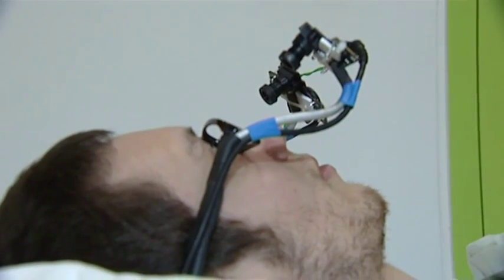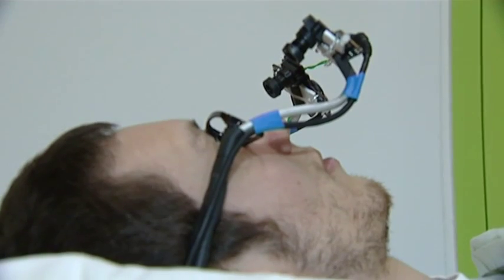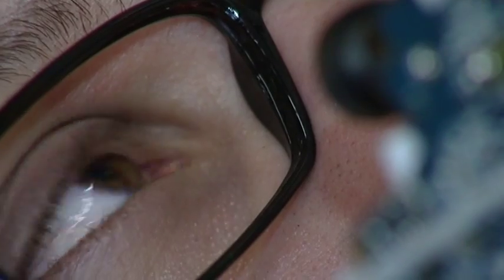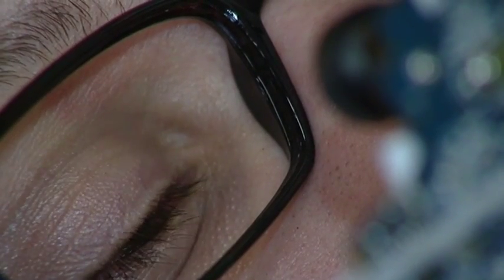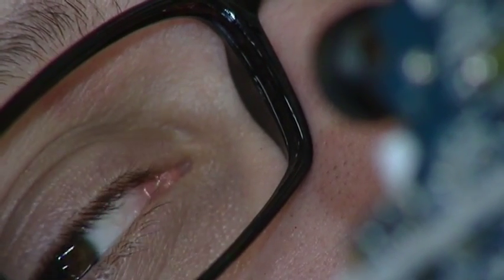The technology works actually rather simply. We have two cameras that are mounted close to the eyes, outside of the line of vision of the patient, and they basically record an image of the pupils of the eye. From where the pupils are in that image, we can work out where the patient is looking.